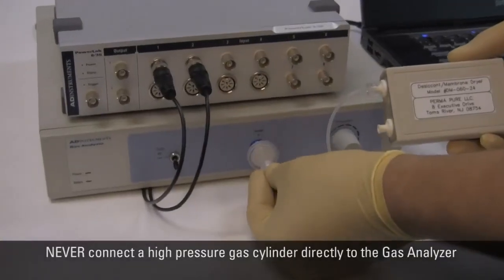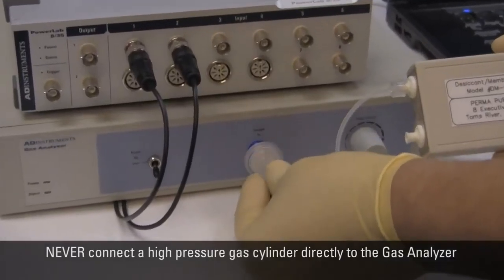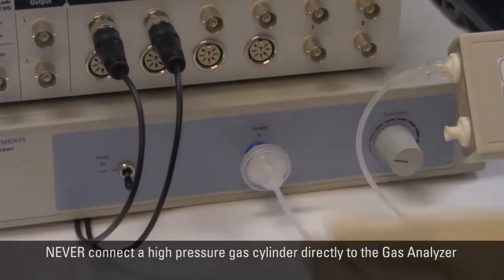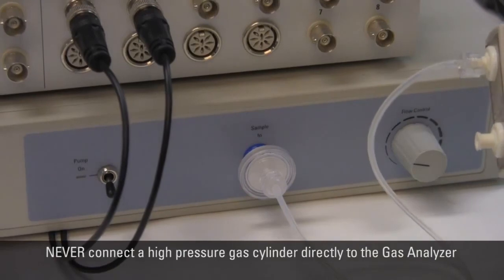It is important that you never connect a high pressure gas cylinder directly to the gas analyzer because it will damage the transducers.